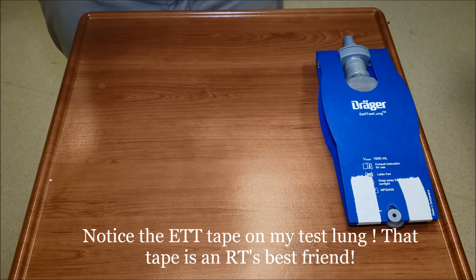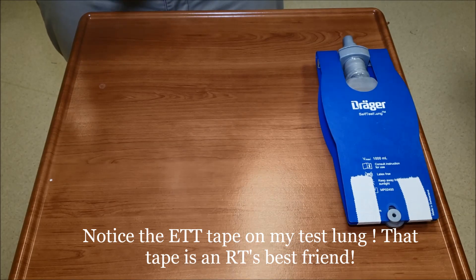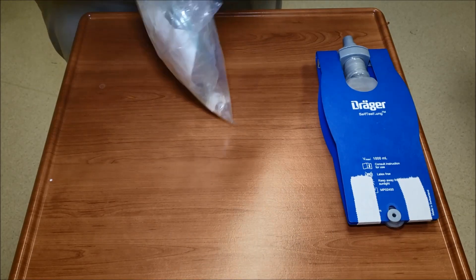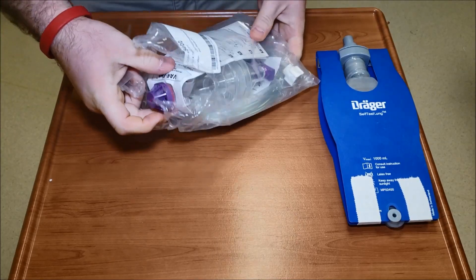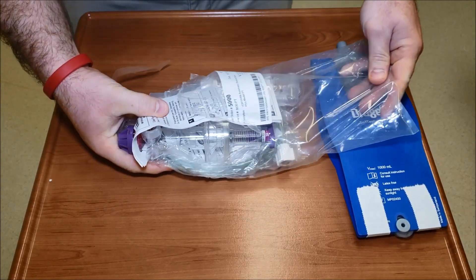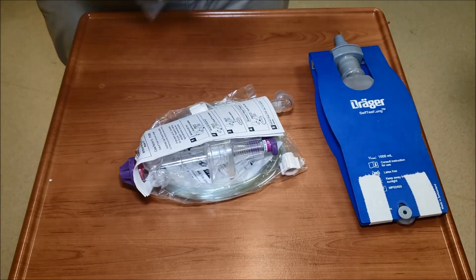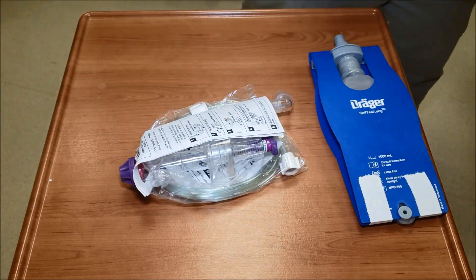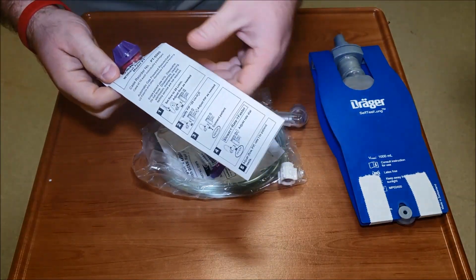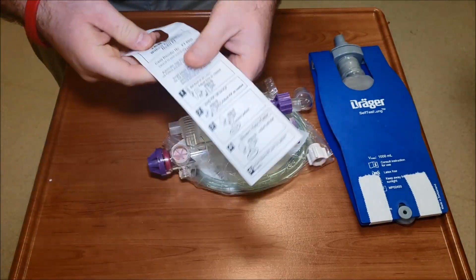Let's open this thing up in the most dramatic fashion we can, ripping the bag. We're going to pull it out, set that to the side. You have special instructions on here.